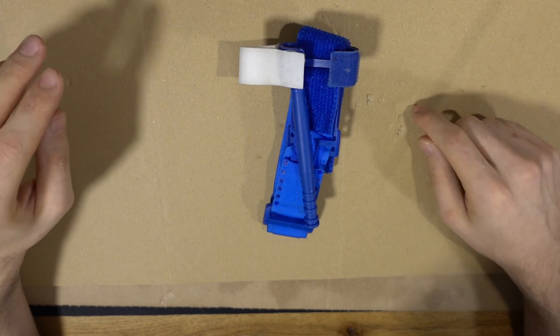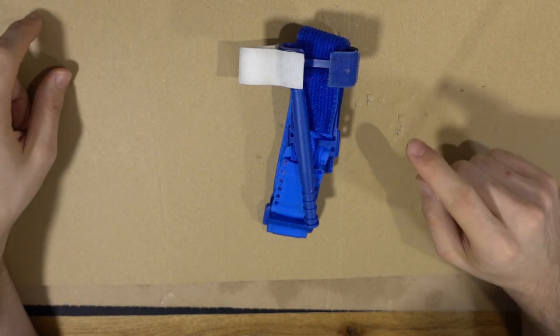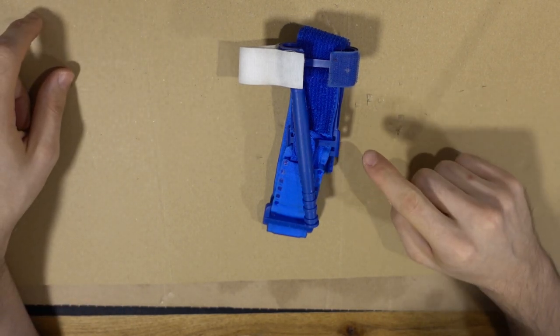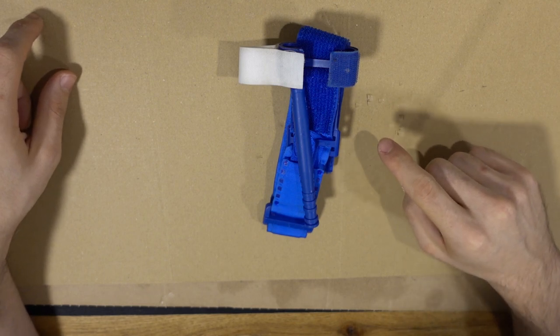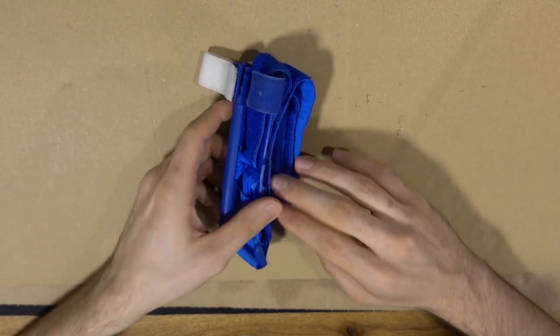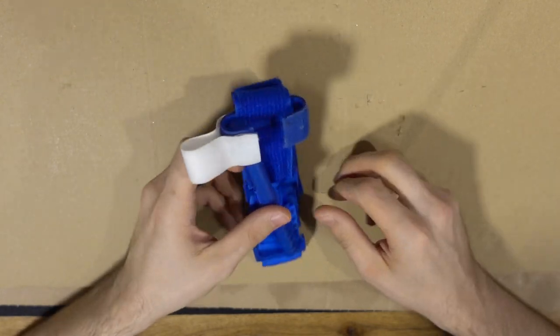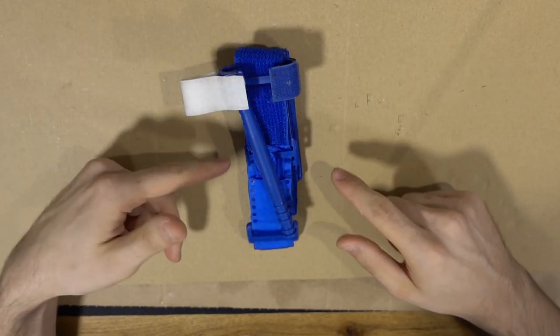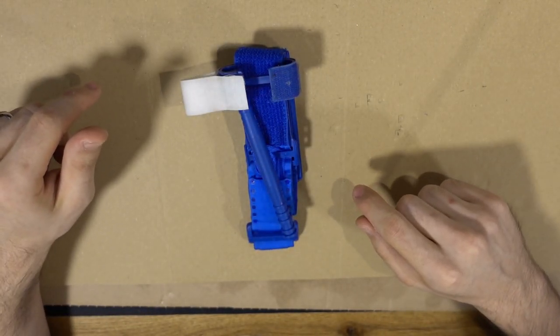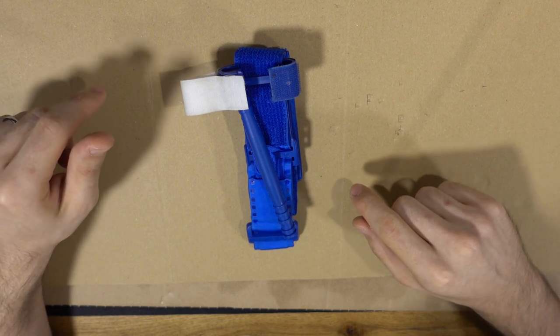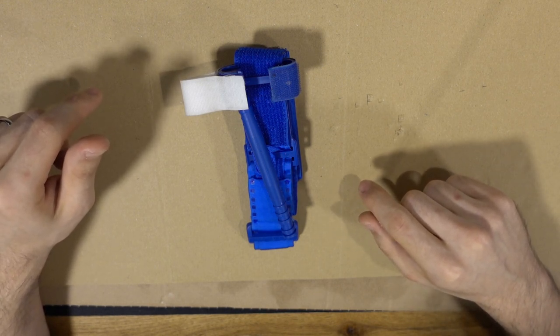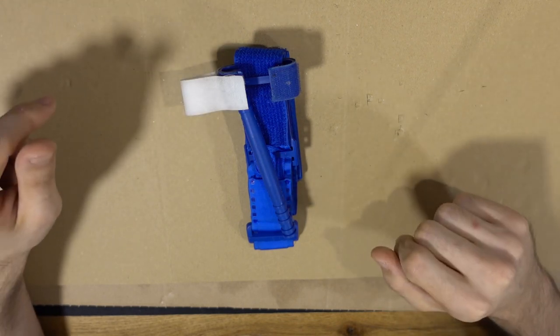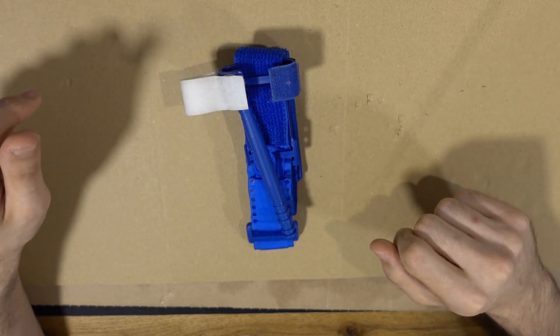Something even more important. If you buy tourniquets, make sure they're legit. There's lots of fakes and that's actually pretty sad. Lots of cheaply made fakes, and imagine having to use this and it breaks on you just because you got scammed. So make sure you buy it from a good vendor and don't even start on buying some cheap knockoffs from like Wish.com or AliExpress. This is serious equipment and you don't want to cheap out on that.